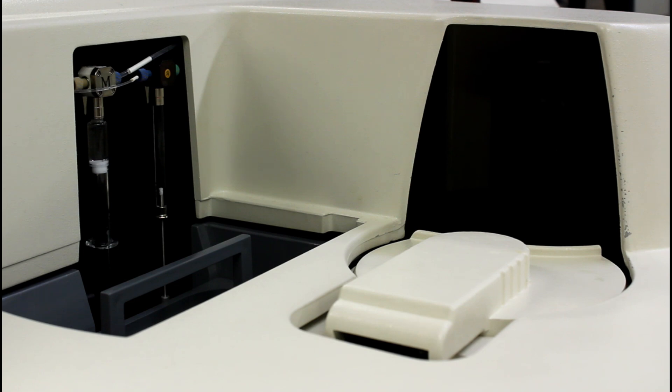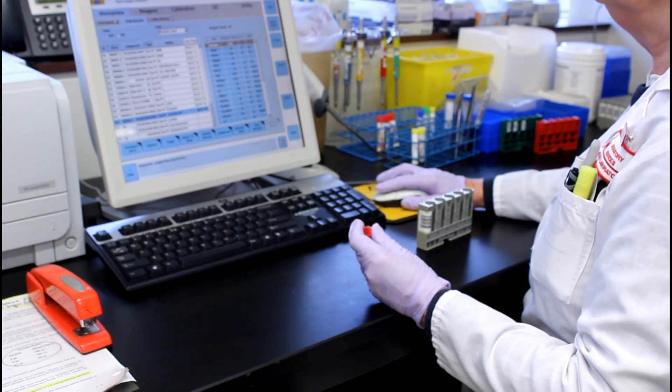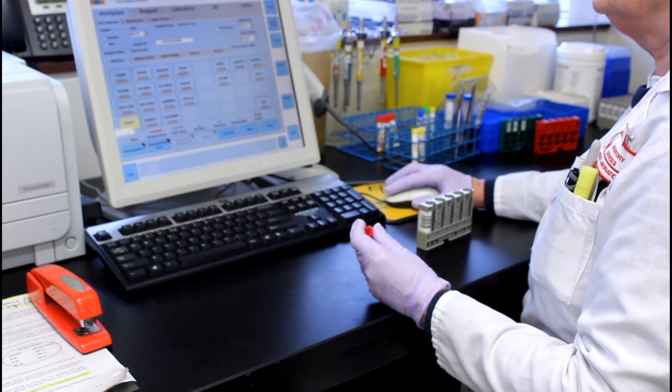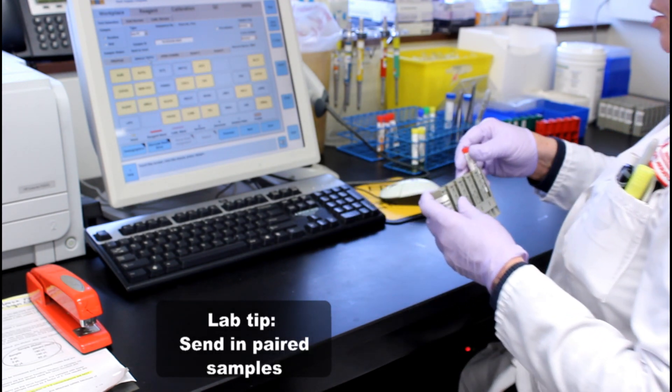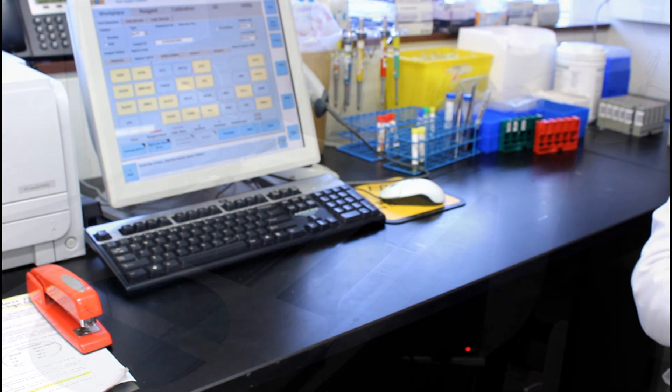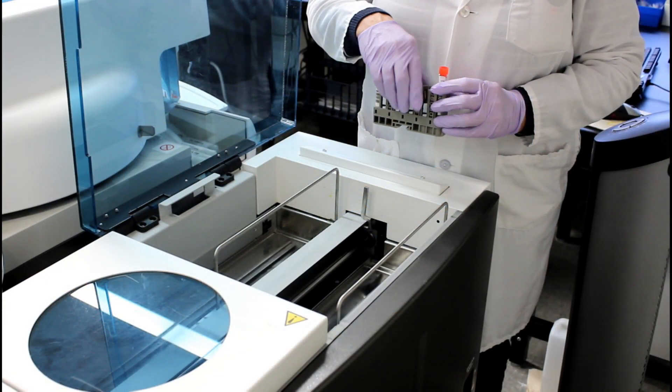Clinics may have their own machines, and doing quality assurance is really important on these machines too. There are a couple of great ways to do this, including sending in paired samples, one done on your machine and one in a commercial lab on a regular basis, or running quality assurance samples frequently.